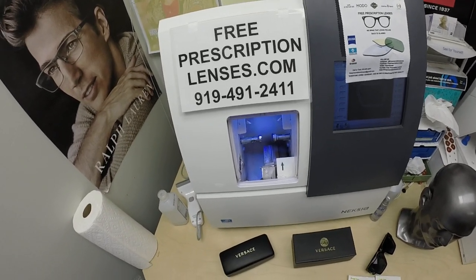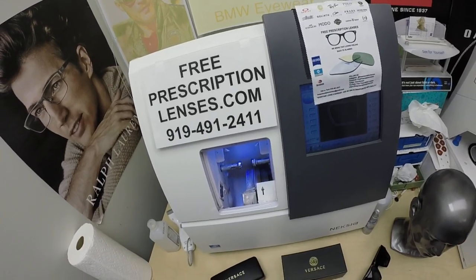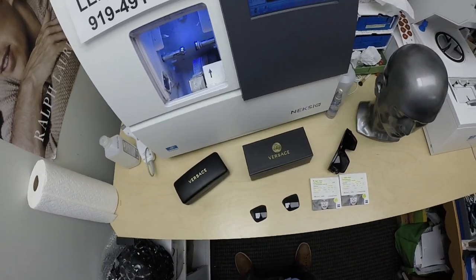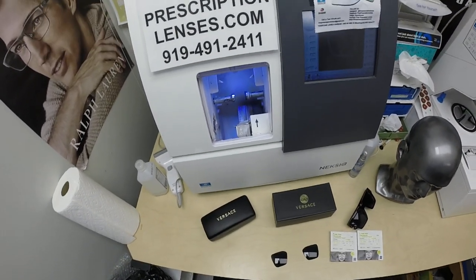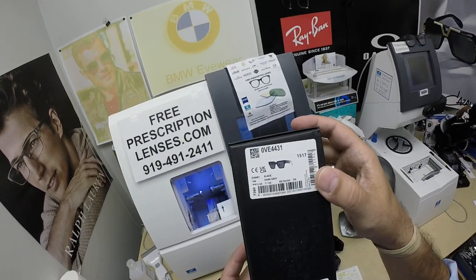Hello everyone, a special thank you to Nikolai in San Francisco, California. This is freeprescriptionlenses.com, where everyone loves a bargain and no one is disappointed with quality. I am the optician behind the lens today. My name is C. More Better — call me Mo. Mo Better, because I might be seeing Mo Better. Let me show everyone how I bring that loving feeling back to glasses with Nikolai's Versace 4431.